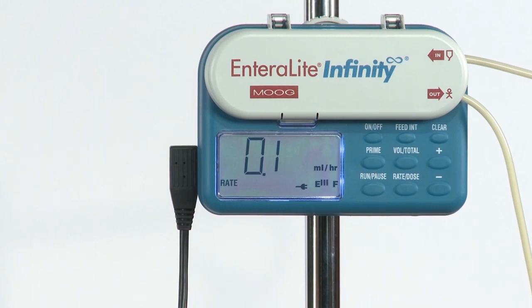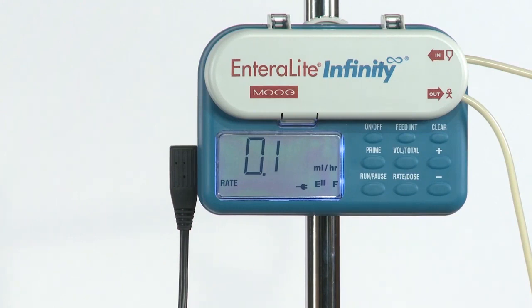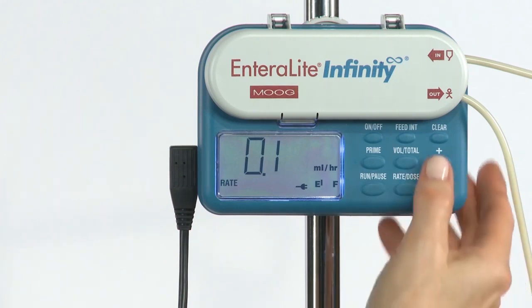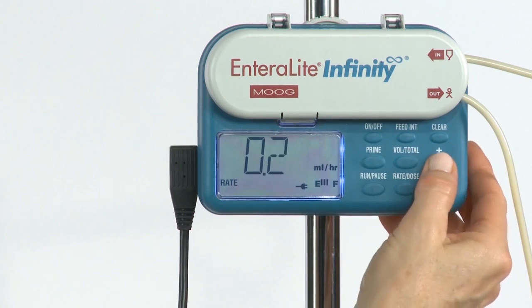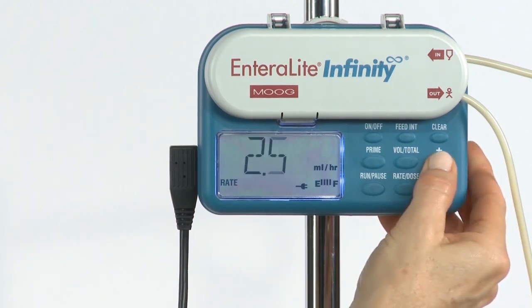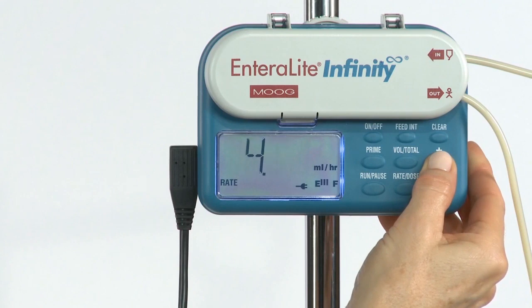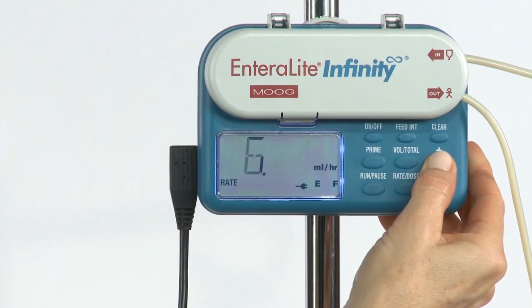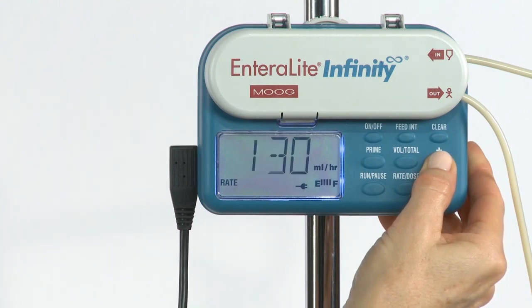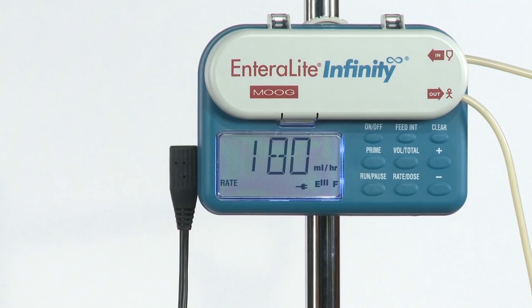The feeding rate and dose are changed in increments of 0.1 milliliter up to 10 milliliters. Once 10 milliliters is reached, the numbers will increase in increments of 1 milliliter. The longer the plus key is pressed, the faster the rate will increase.